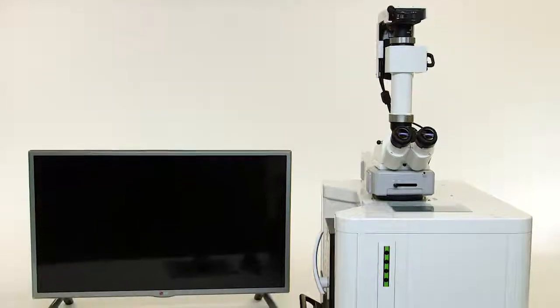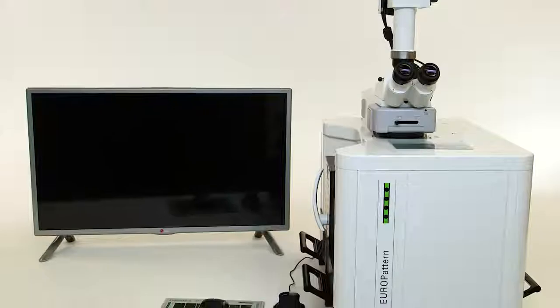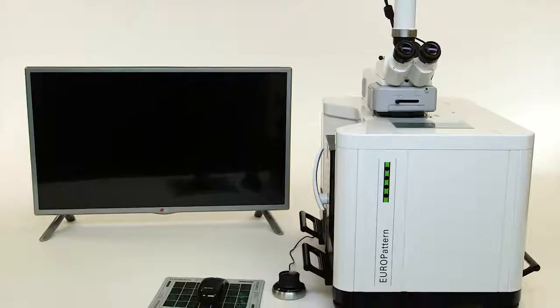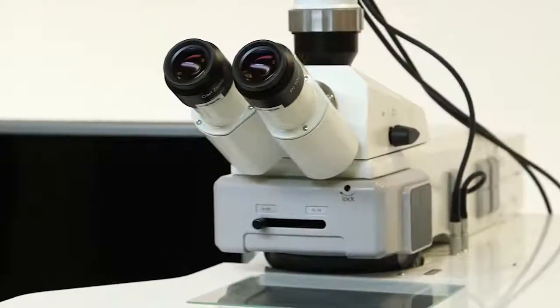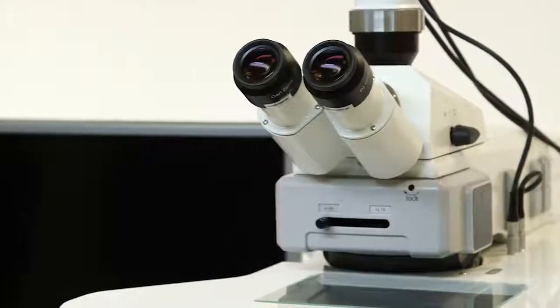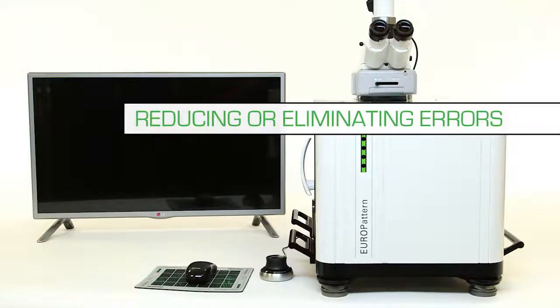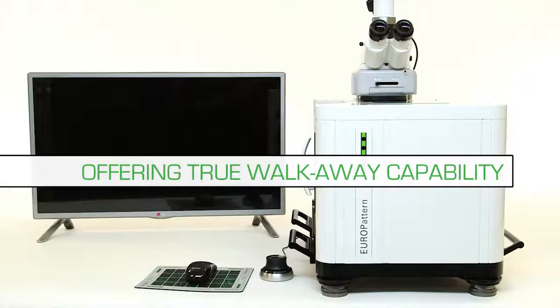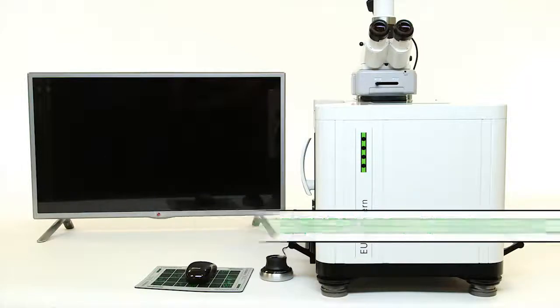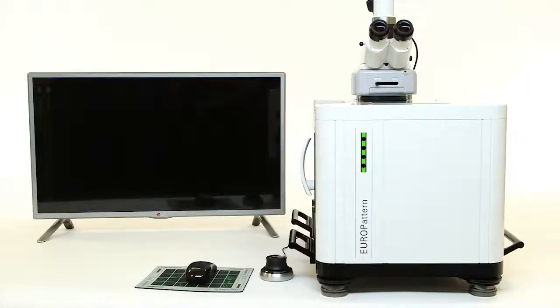The Europattern Suite 1.5 is a state-of-the-art computer-aided immunofluorescence microscopy system that is redefining the IFA workspace and improving efficiency in the laboratory by maximizing throughput, reducing or eliminating errors, offering true walk-away capability, and shortening turnaround time. This demonstration will consist of four parts.